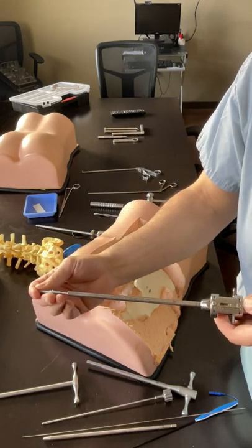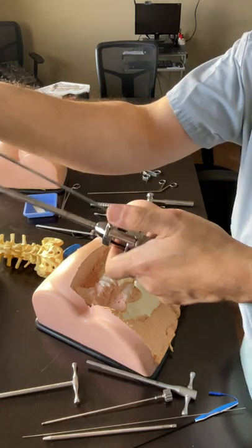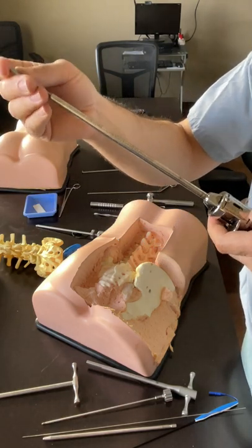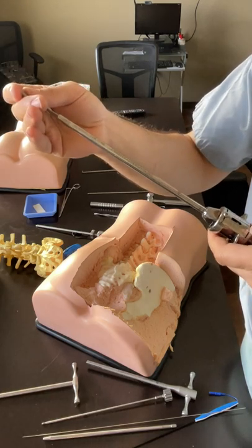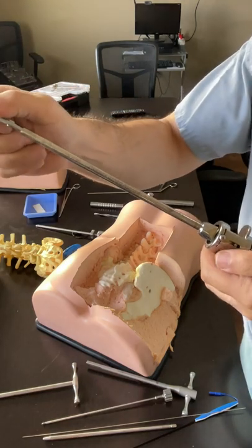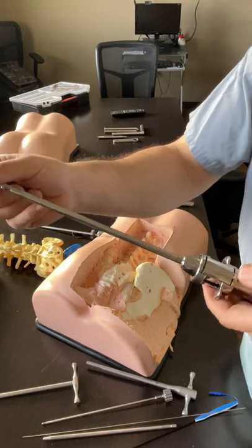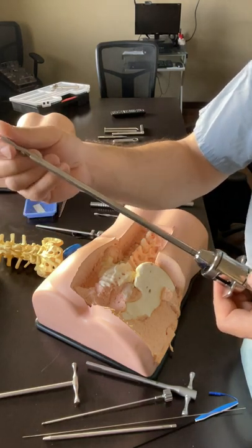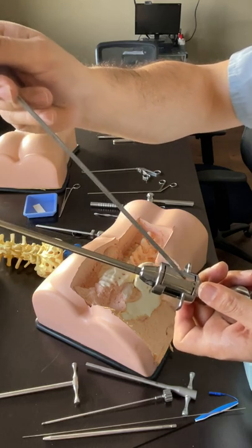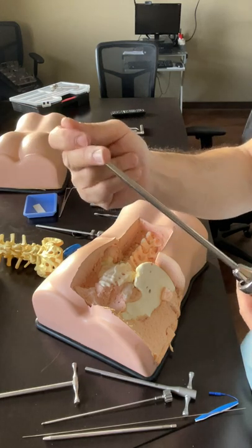To put it back, you go this way, push it in - the notch has to be facing down - and it engages. This goes in the direction of the other window. You flip it 180 degrees, push it in, and it engages.